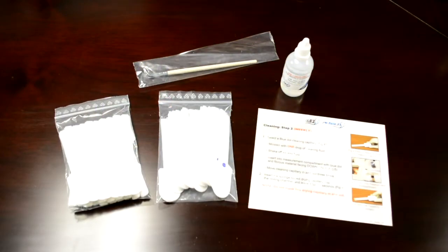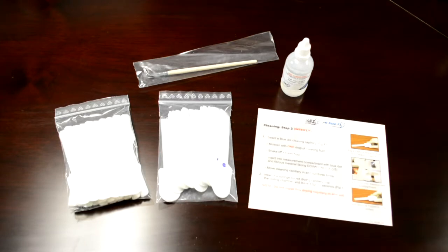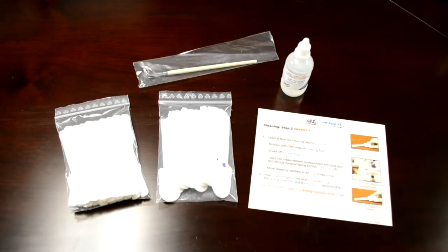The cleaning kit consists of a 6-inch wooden electrostatic brush, two types of cleaning paddles, one with a blue dot in the middle and a fibrous cleaning surface, and one with a spongy surface, a dropper bottle containing cleaning solution, and instructions on how to use the kit.